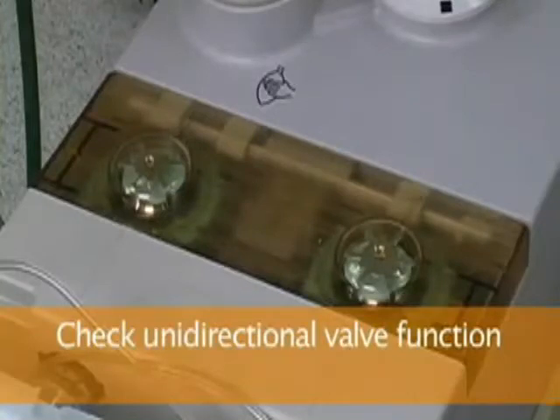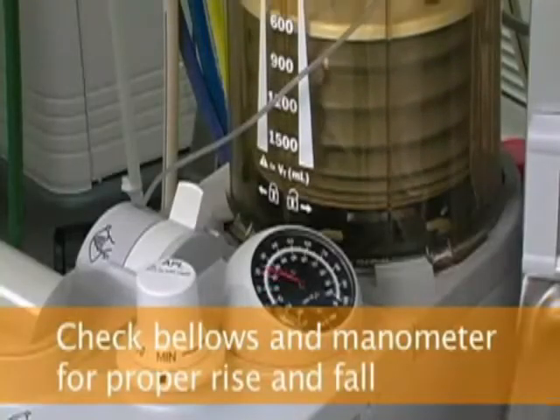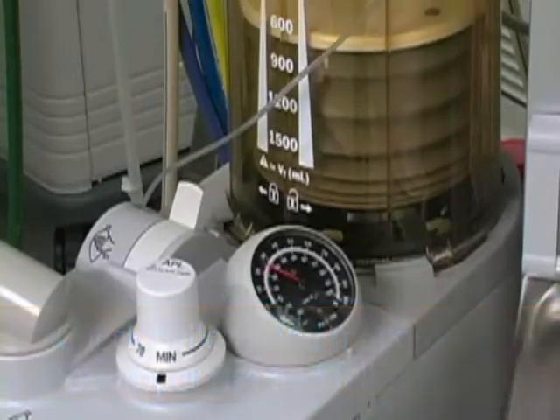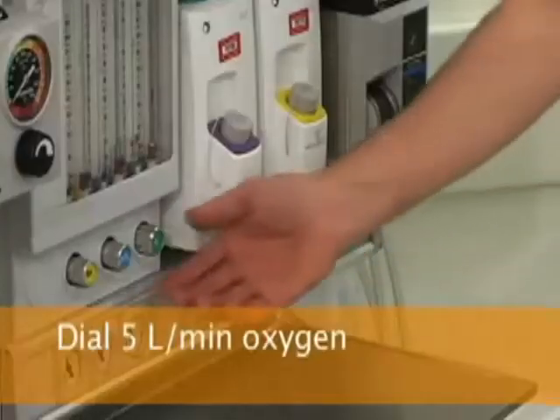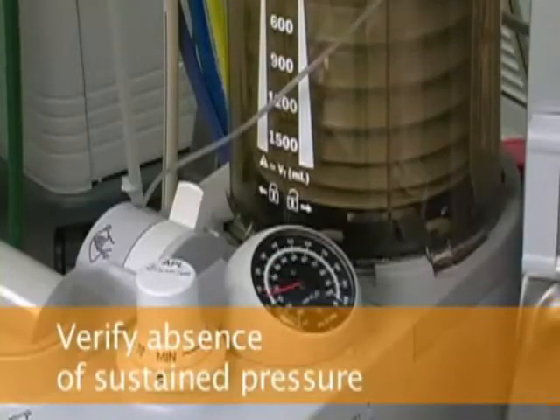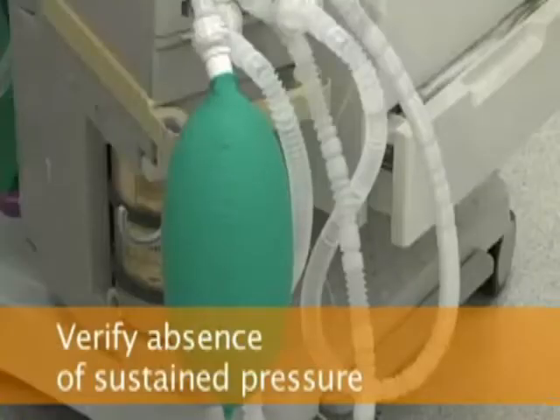While ventilating the reservoir bag, check the function of the unidirectional valves. Also check that during expiration, the ventilator bellows fill completely and that the manometer works correctly. Then increase oxygen flow to 5 liters per minute and verify the absence of sustained breathing circuit pressure during continued ventilation of the reservoir bag.